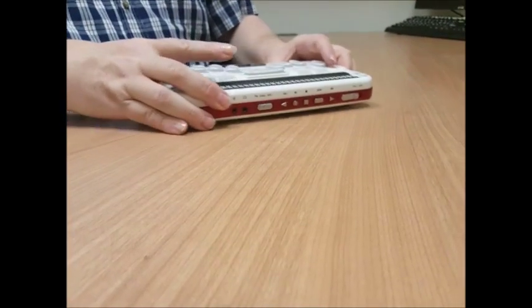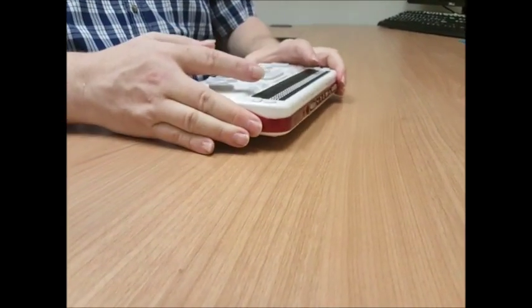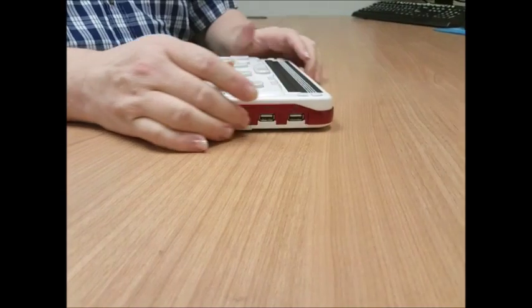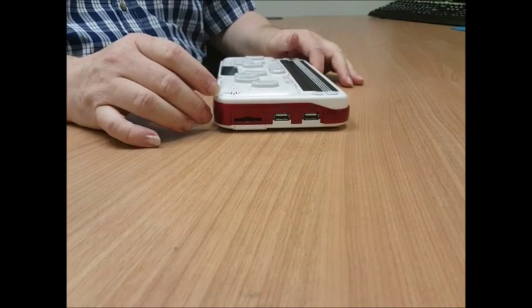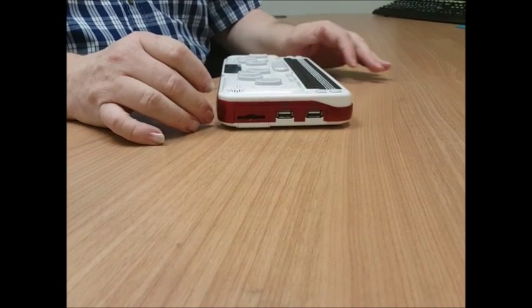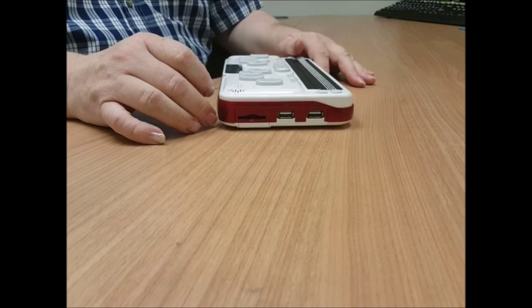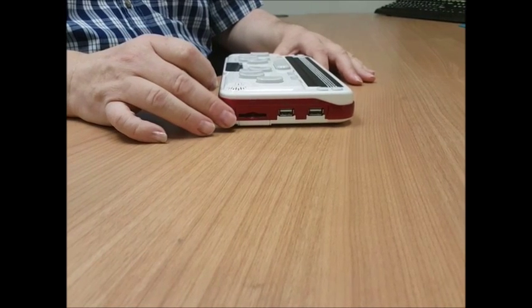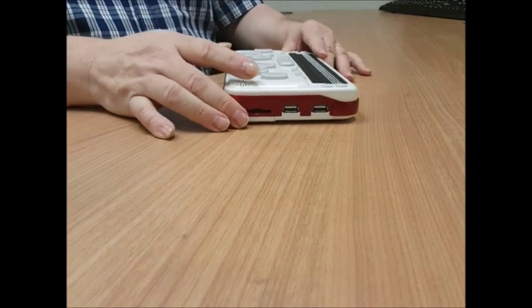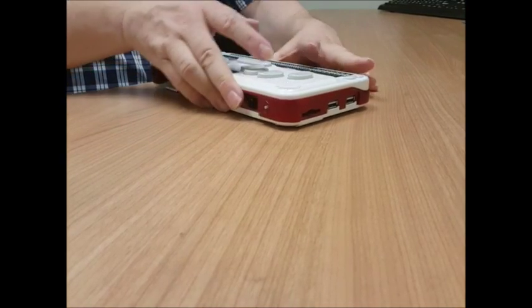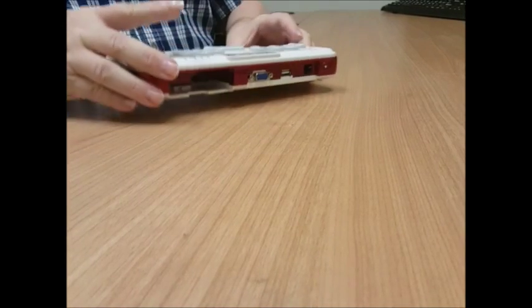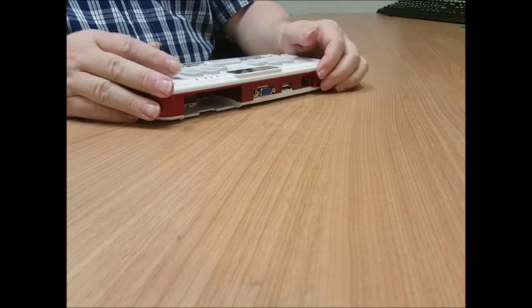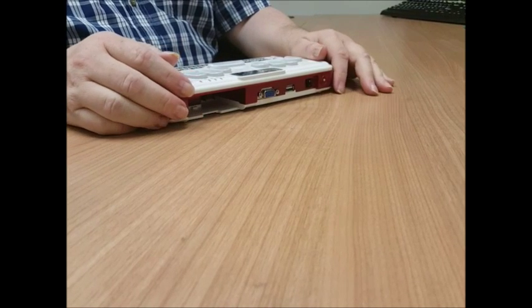If I turn the unit around a little bit more to what would be the left side of the unit. In the front of the unit, we have two USB ports, and then the SD card in the back. And if I give it one more turn, so now it's back in the position that I would be using it in with the back furthest away from me.